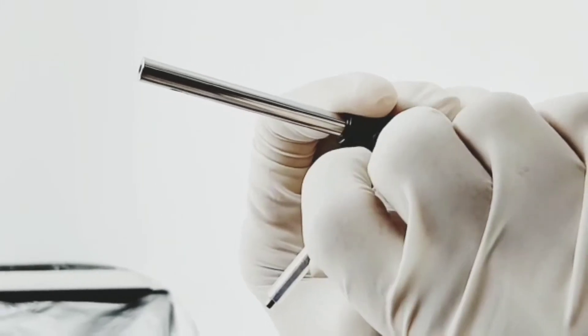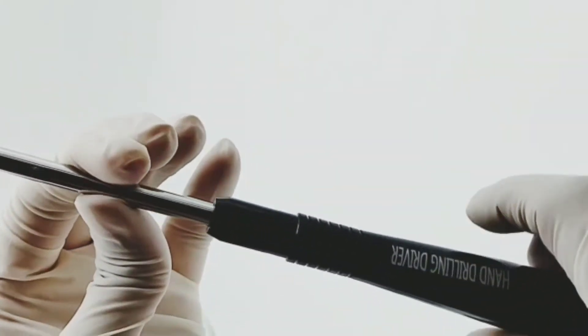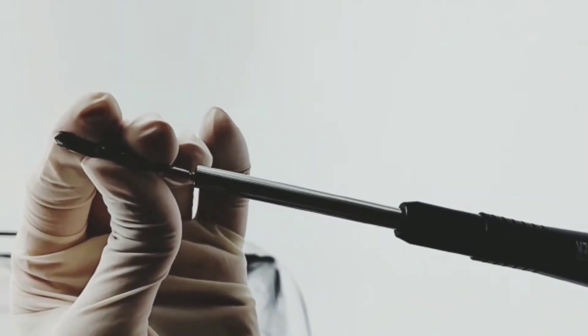It leads to trouble-free placement even in very hard bone and is compatible with all other contra-angle handpieces.